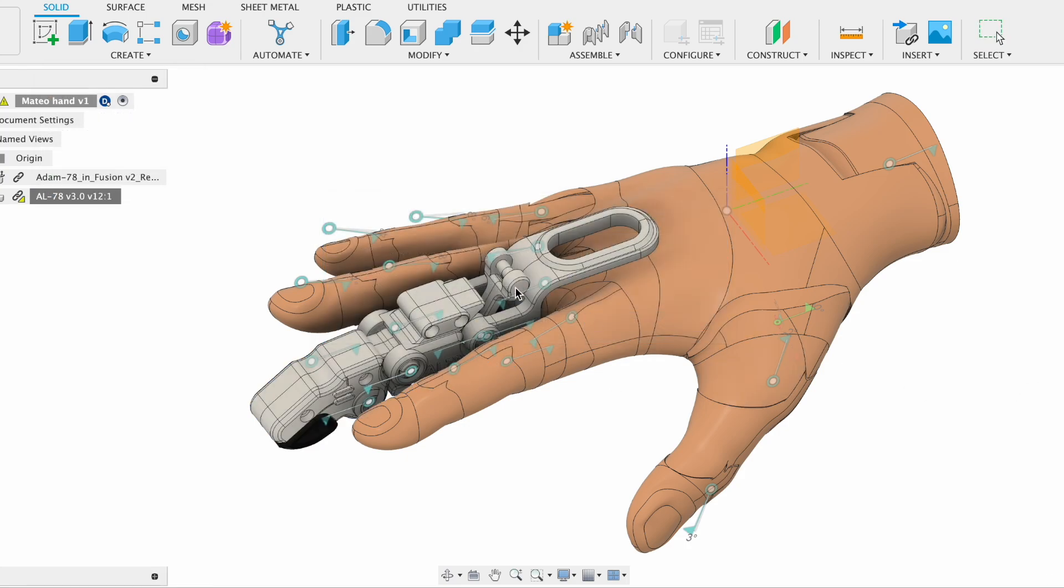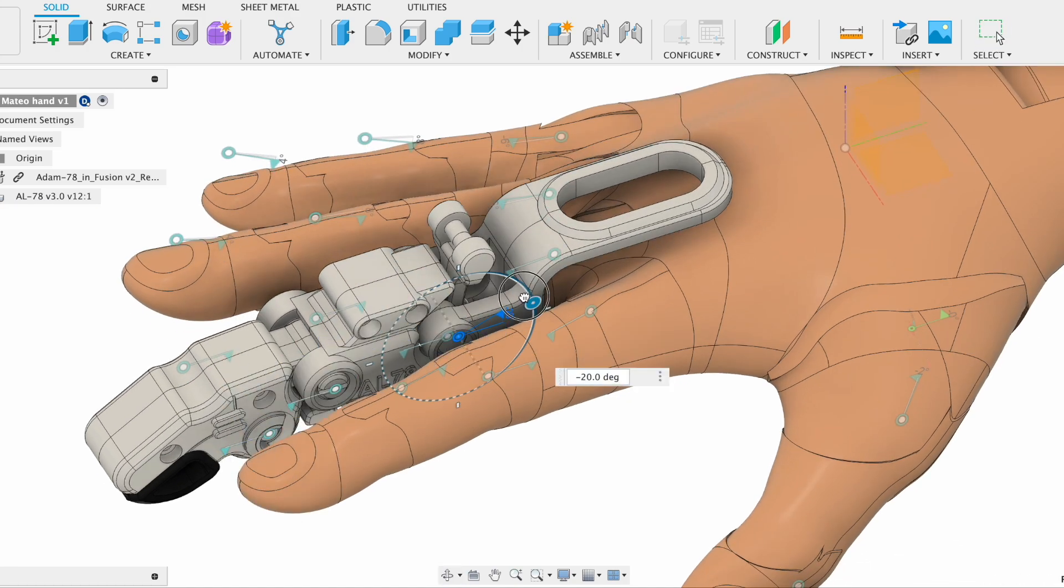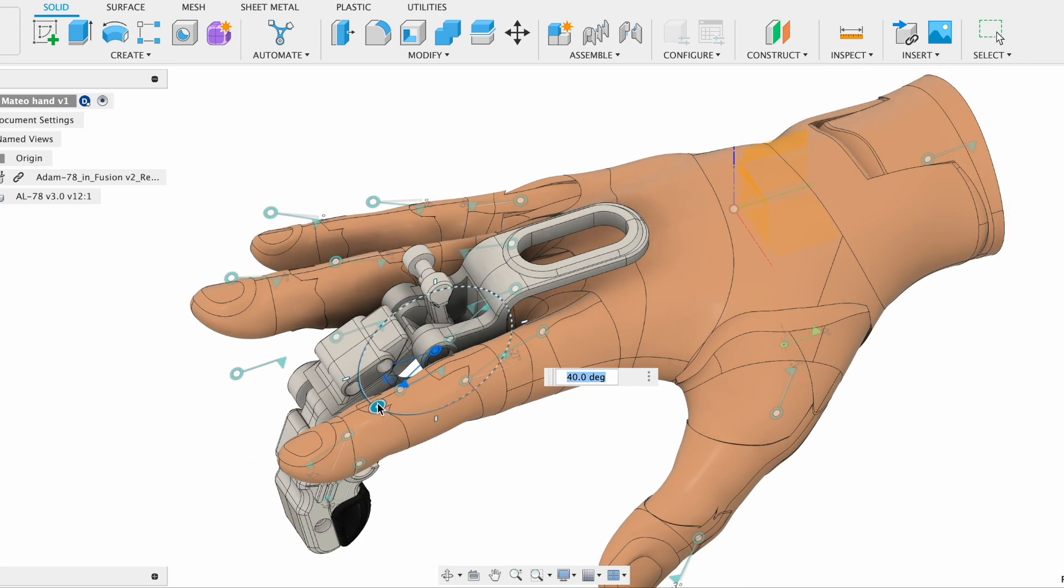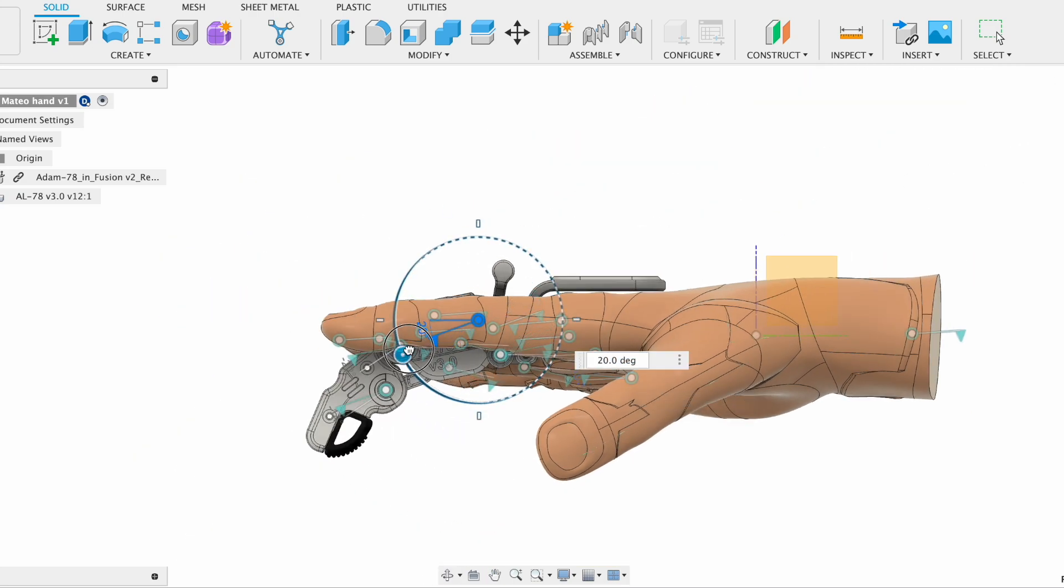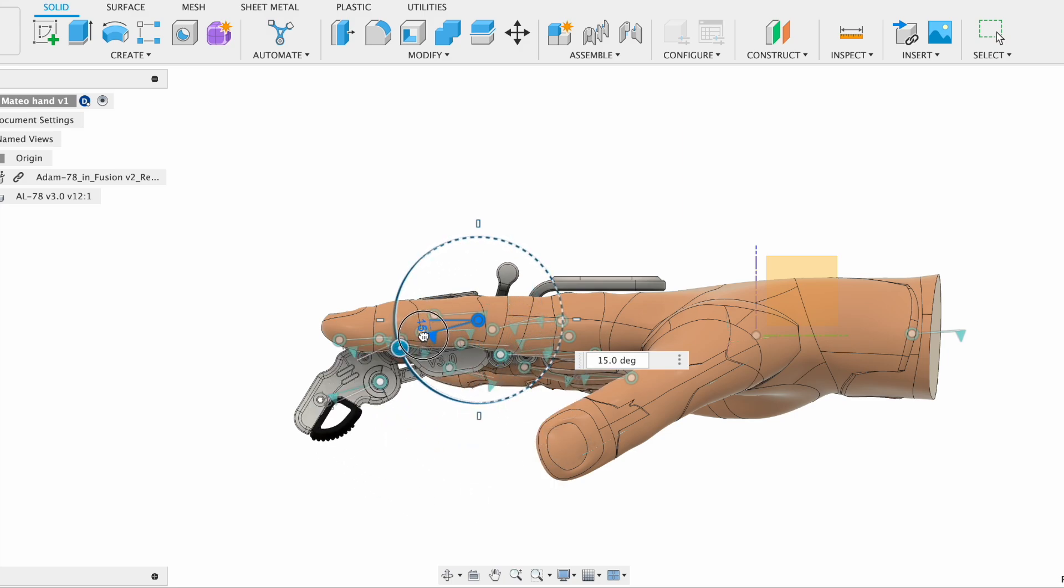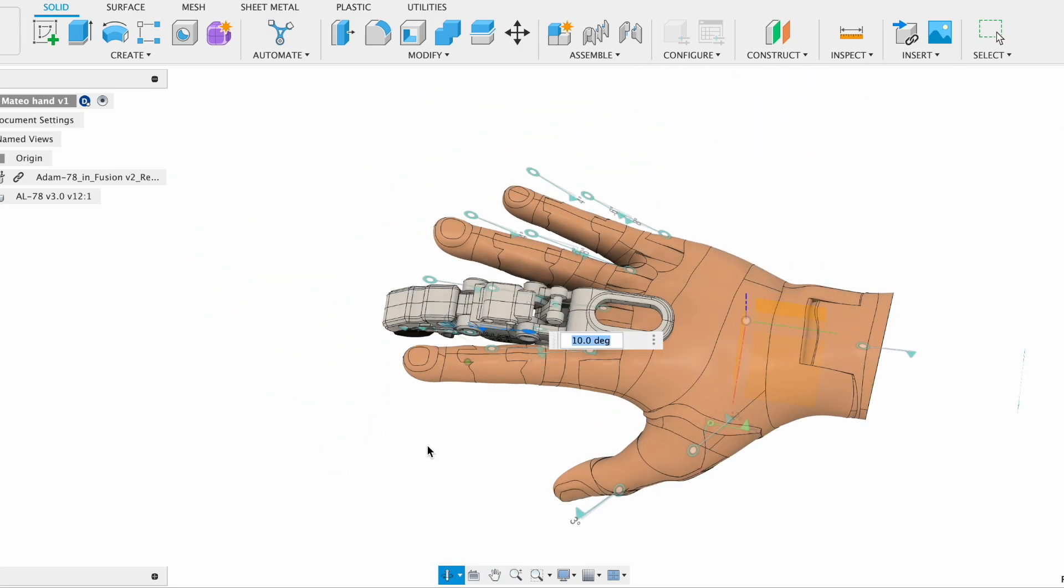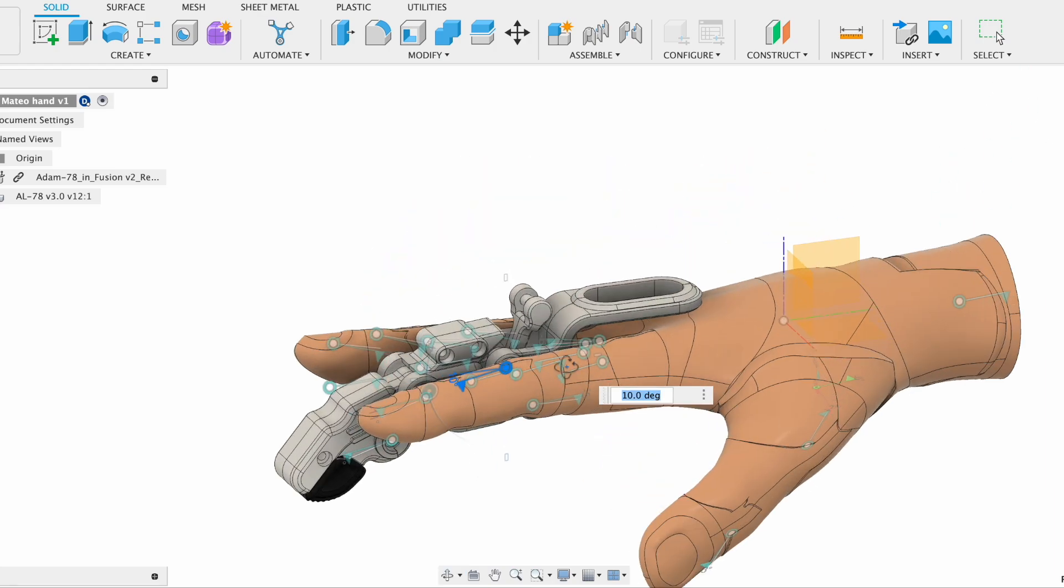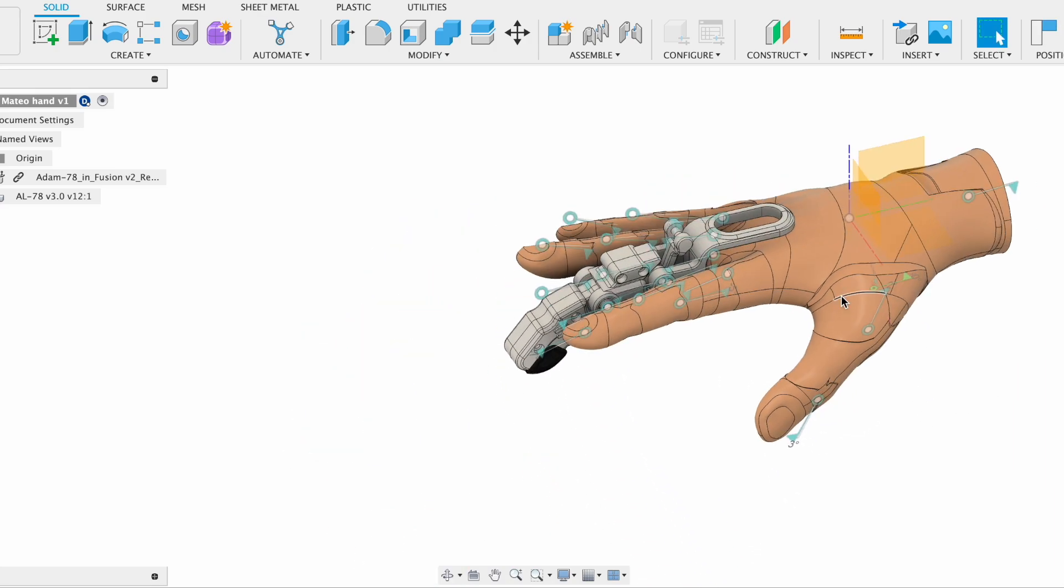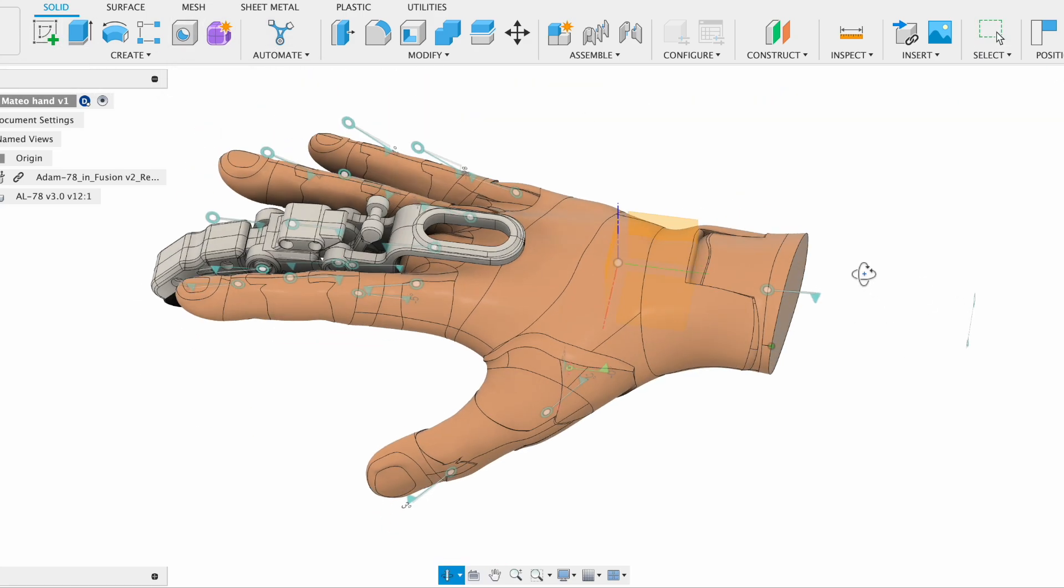So we have to import and break the link so we can control the joints inside. You can individually select those linkages, but since everything is connected through linkage, you can see that one simple movement of the component leads to the complete movement of the whole finger. And you can see the top part here at the end which will be pulled with the string.